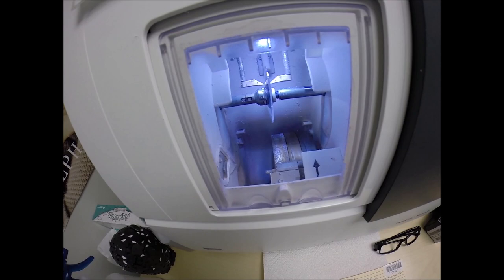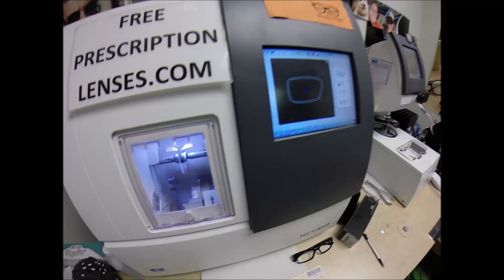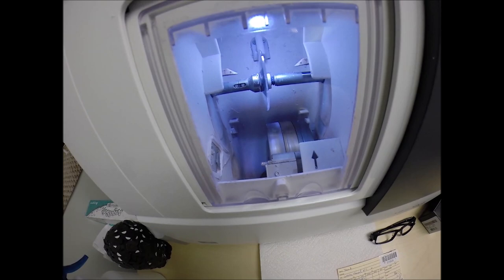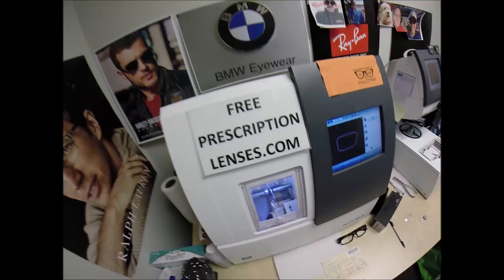If they were plastic, high index plastic or trivex I would select that. I'm not going to polish the edge of the lens because it's not going to be seen in this frame and I generally don't do it anyway even if it was visible. Let me take the right lens, it's already in there, it's in the chuck. I'm going to hit the green arrow which will start, the door closes, the clamp shuts, and the lens is going to be traced by two white styluses, very stylish styluses.